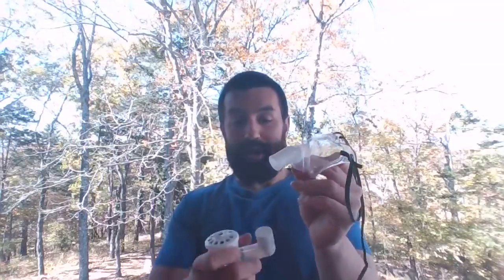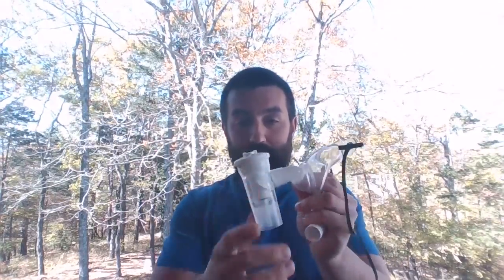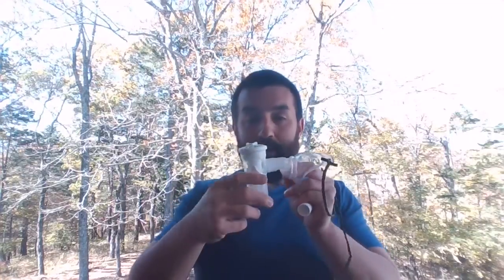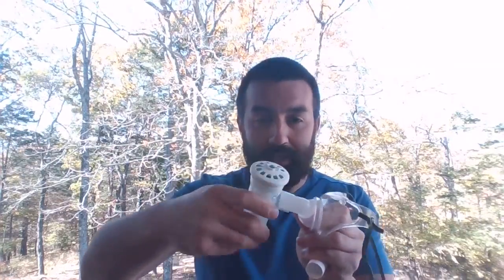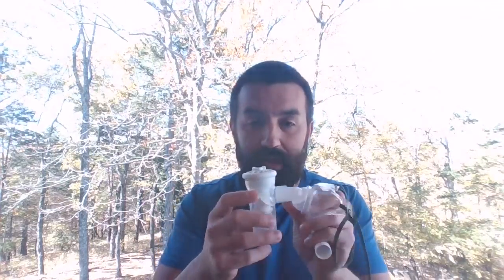Now, once again, a trach collar is a little tricky. All right, so if I have my patient, they're on a trach collar like this, I'm also going to show you, you could set it up like this, okay? But most of these patients, it's going to sit on their chest, and you're never going to be able to get that thing to sit flat. All right, so we need some other stuff.